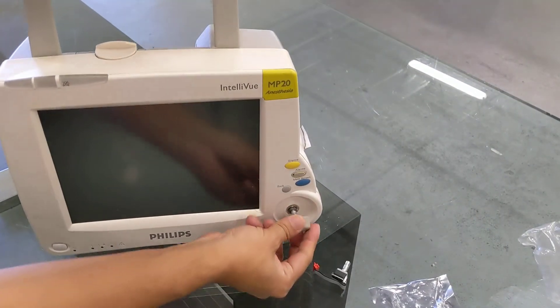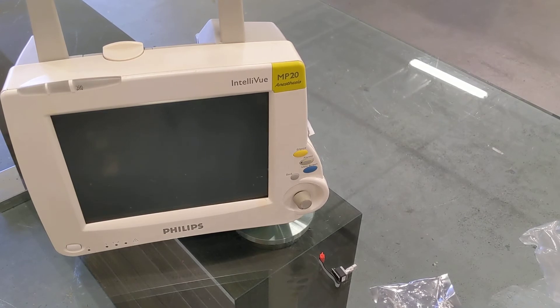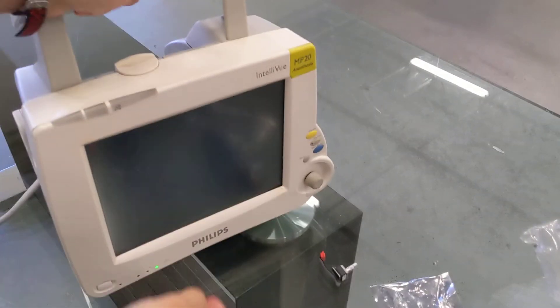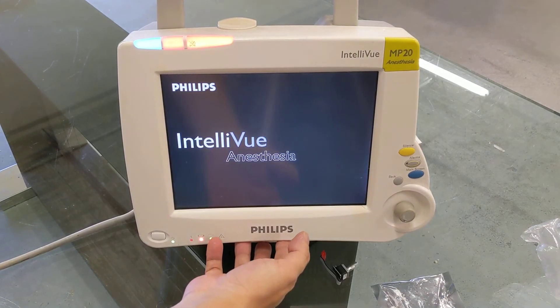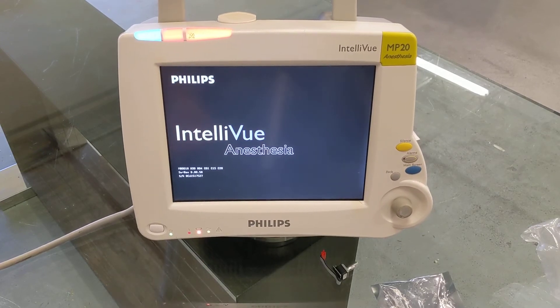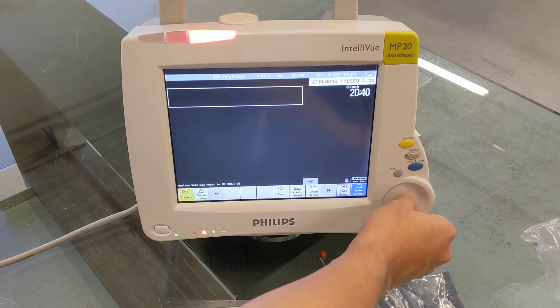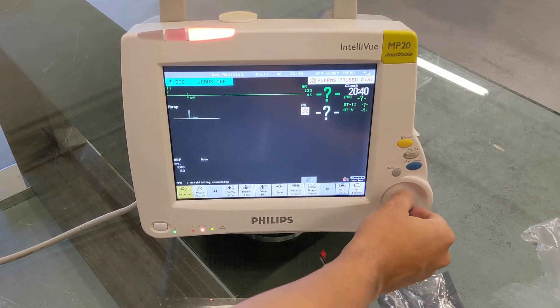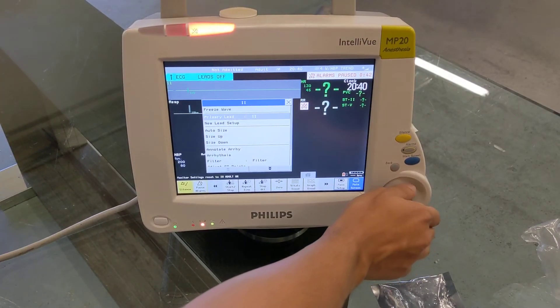Just add the button again, and it looks like it works. Connect the unit and see if the button is clicking again. There we go — it turns on. It's an amazing machine, one of my favorite Philips. It looks like it definitely scrolls between the menus. It's up and running.